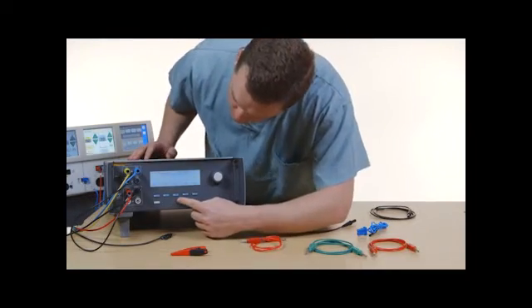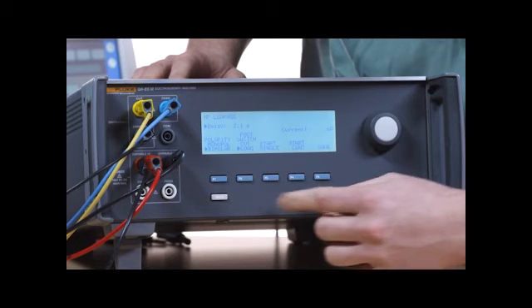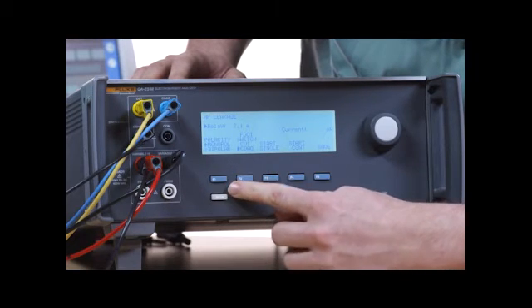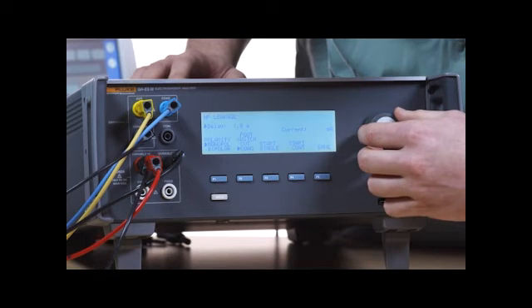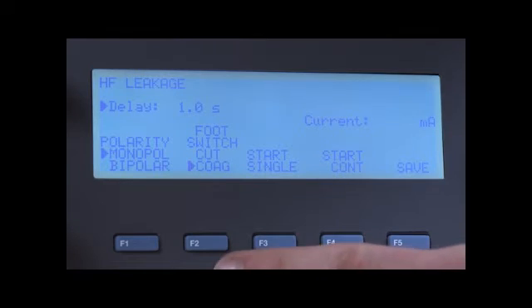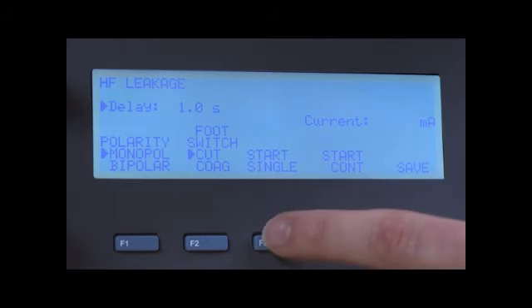On menu 1, select HF leakage. Set polarity to monopolar. Use the rotary knob to set the delay for the foot switch. In this example, the delay is 1 second. Select cut or coag. Push F3 to start a single measurement.